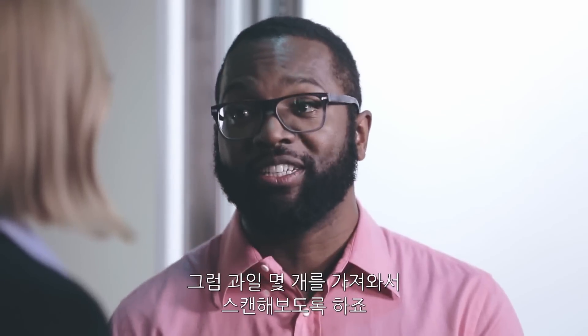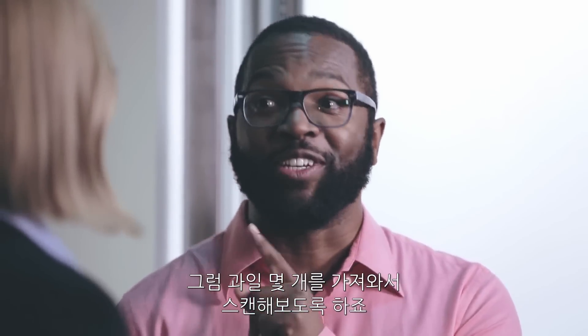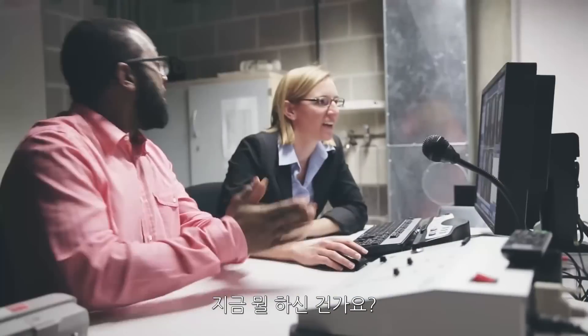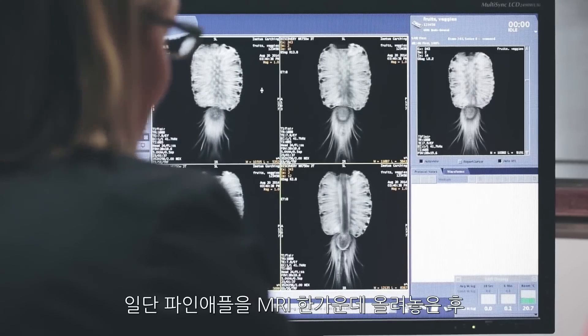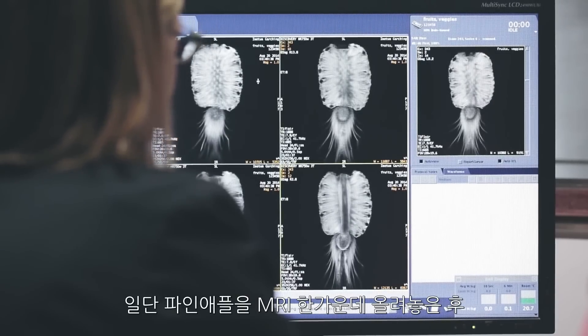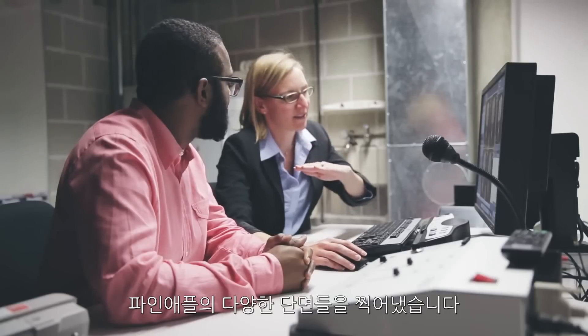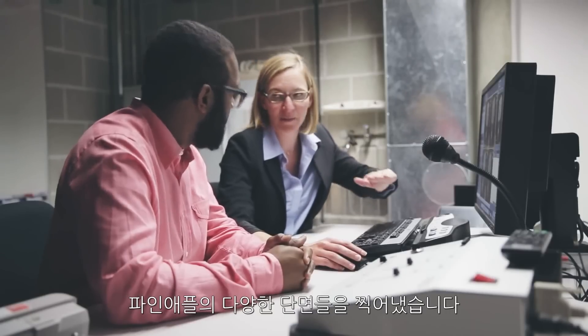I so want to scan fruits. All right, I'm going to get some fruits and we're going to scan them. I've never said that sentence before in my life, and it makes me happy. So we placed the pineapple in the center of the magnet, and then we told the magnet to acquire a series of virtual slices through the pineapple.